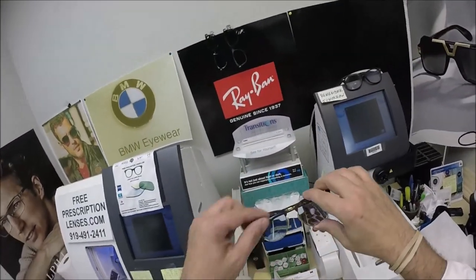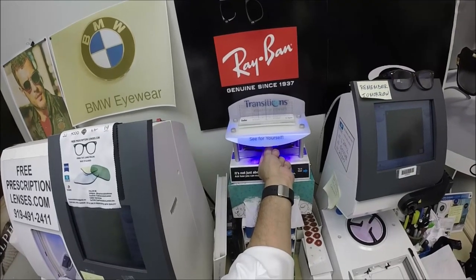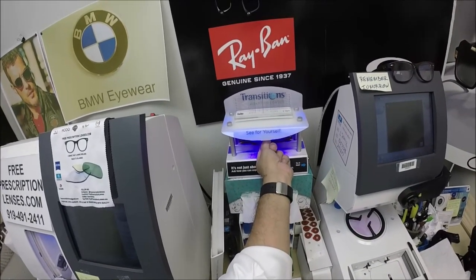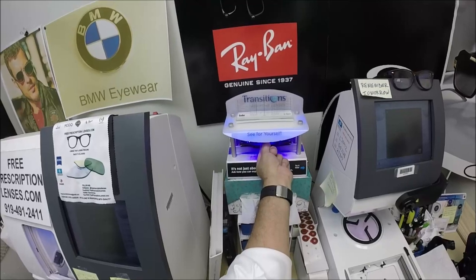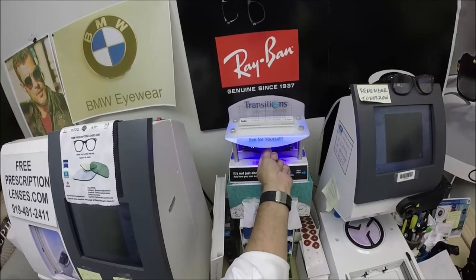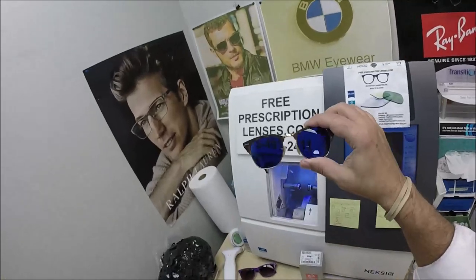I'm going to go ahead and activate these, meaning I'm exposing them to a strong burst of ultraviolet light. As you can see, it takes about 30 to 45 seconds to darken, a little bit longer when you come back inside — 45 seconds to a minute, minute 15. All photochromic lenses will turn dark on day one and continue to darken every day for the first couple weeks they're exposed to the sun. After that, they will work for years of maximum performance. The only time they won't work is if you're behind the windshield of a car — your windshield absorbs the sun's harmful ultraviolet rays, and that's why they don't turn dark in a car. Zeiss makes a Photofusion Extra gray that will turn dark behind a windshield.